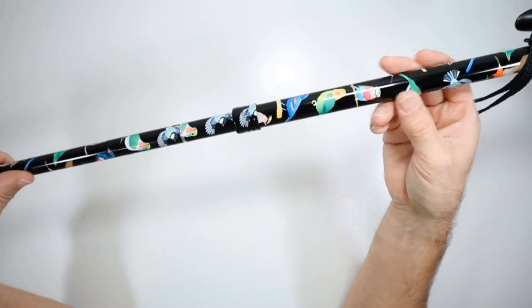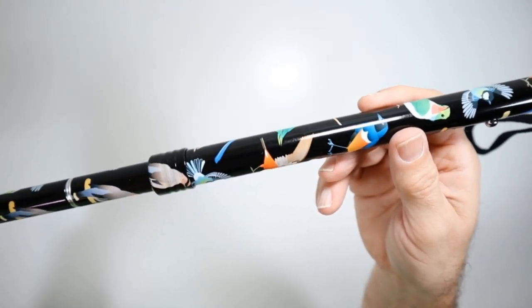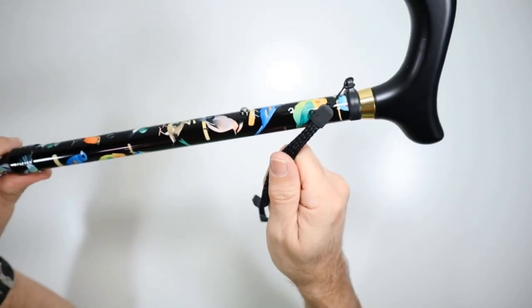This is the Lovebird finish. So you can get a closer look at that. And it also does come with a wrist strap for safety to help prevent dropping.